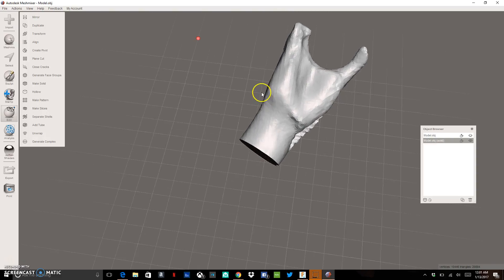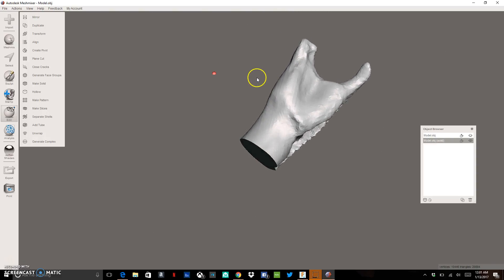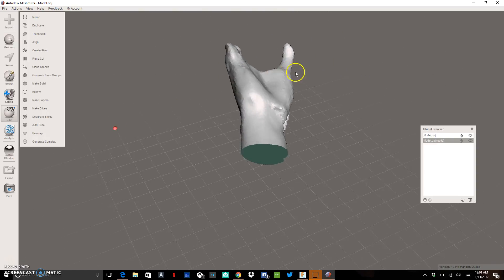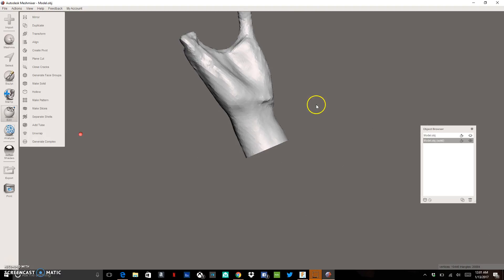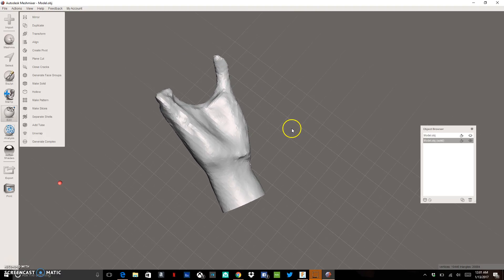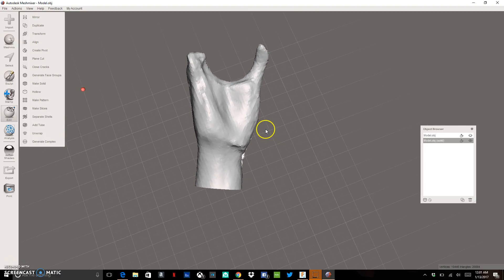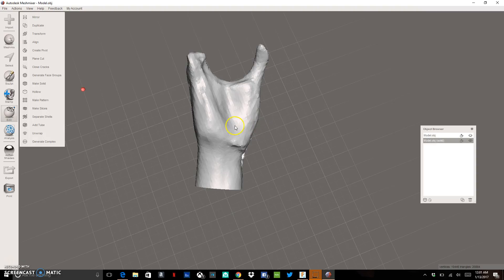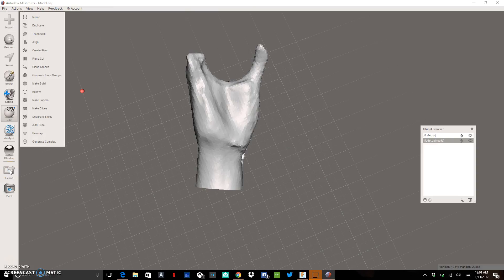Now we're ready to actually send this as a STL file, which we could then print and use it as a base for if we're going to want to print a copy of the hand so that we can have it to try on any new designs before bringing in our recipient. So what we're going to do is we're going to go to export.